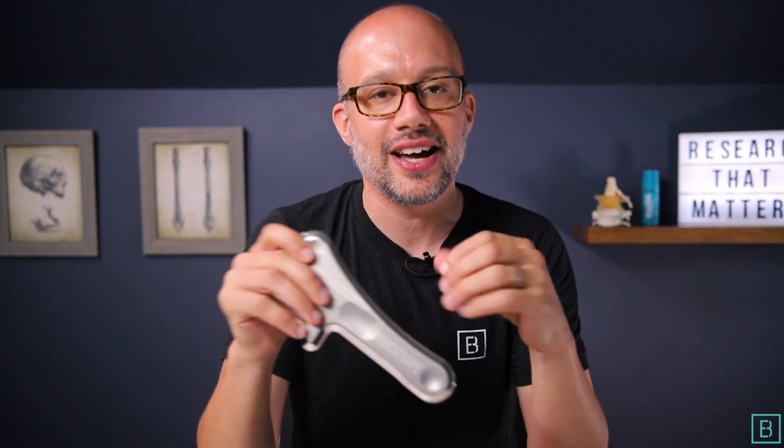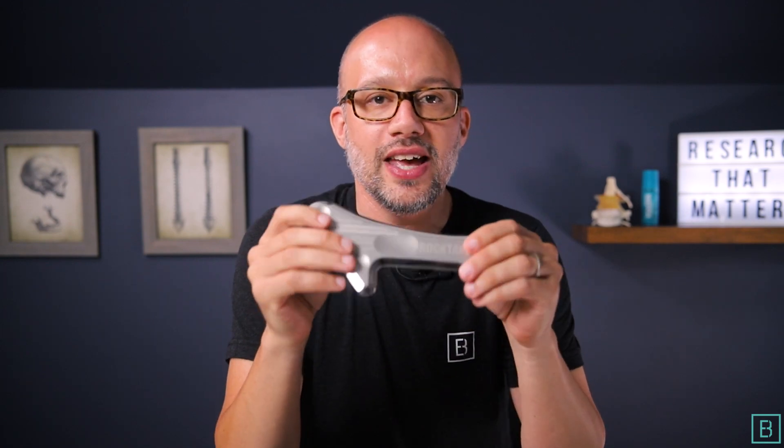If you are a movement specialist and you have not checked out Mohawk to date, I can tell you this is a tool that I utilize and I'd highly recommend you check it out. I'll drop a link down below — check out Mohawk by RockTape. Hopefully this was helpful. If you have any questions about the soft tissue tool or anything to do with fascia and movement, leave it in the comments below. I'll keep an eye out and do my best to answer. Hope you have a great day and I'll talk to you soon.